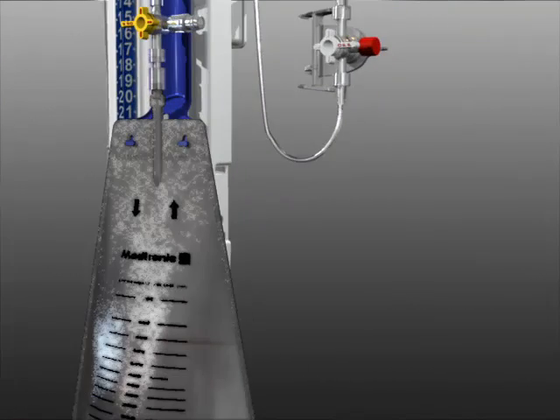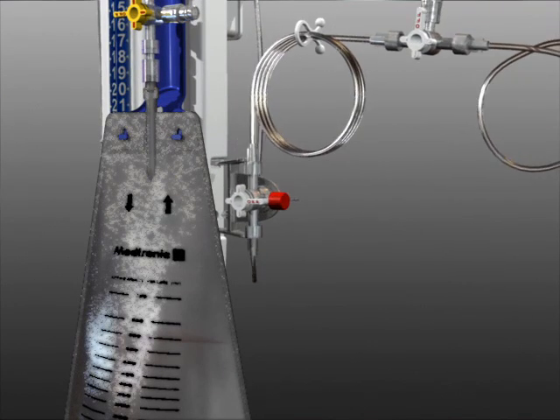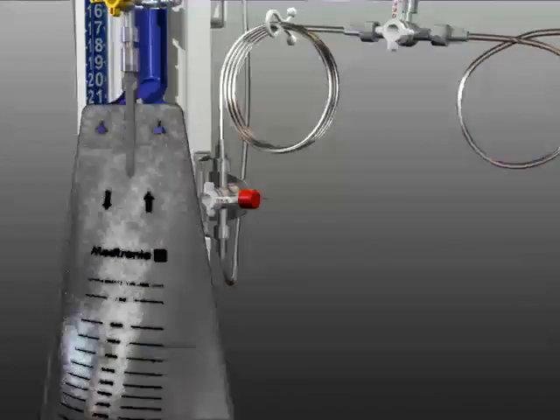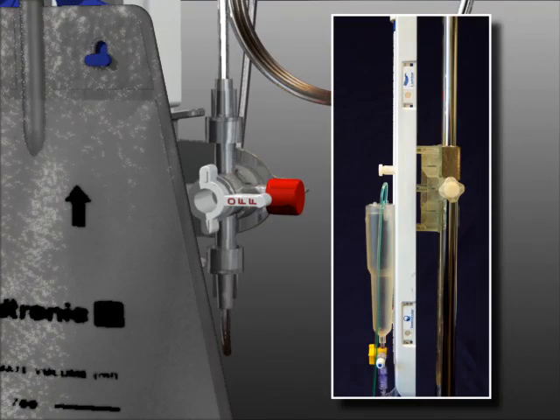Begin by attaching the main system stopcock to the back panel. For ventricular drainage, attach the main system stopcock into the lower location on the back panel denoted by the picture of a patient's head and the word ventricular.